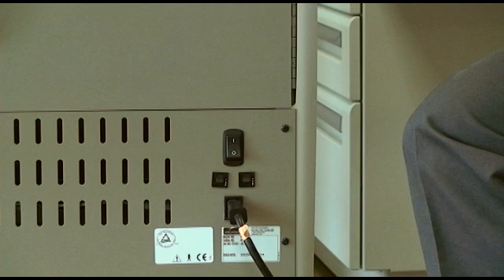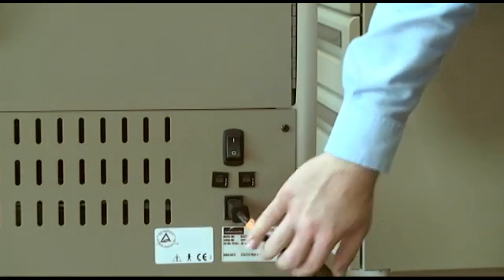The power supply is located on the back of the VetPro, below the on-off switch. Below the switch, you'll find the serial number for your VetPro 1000.